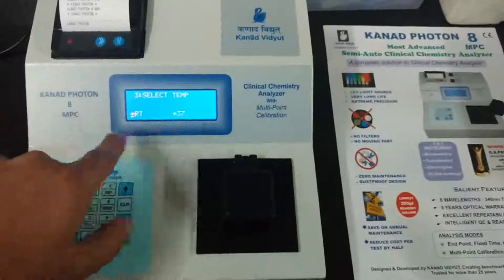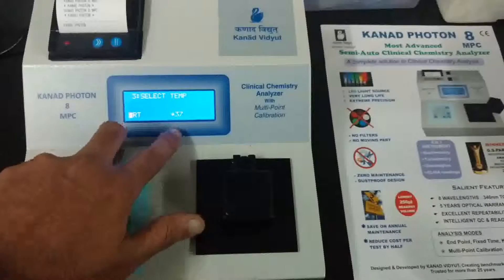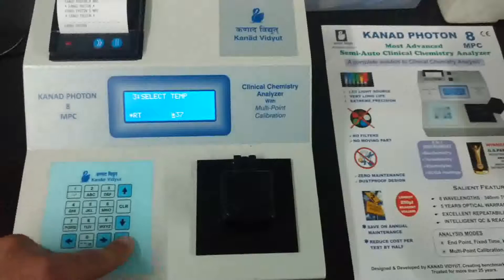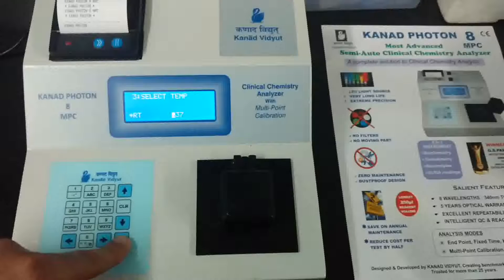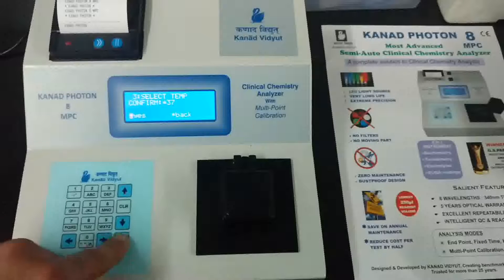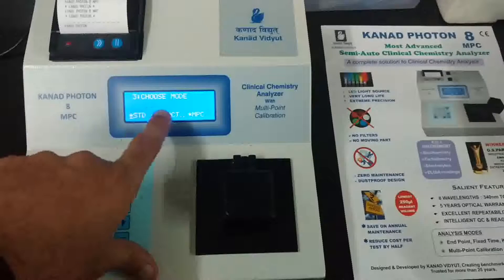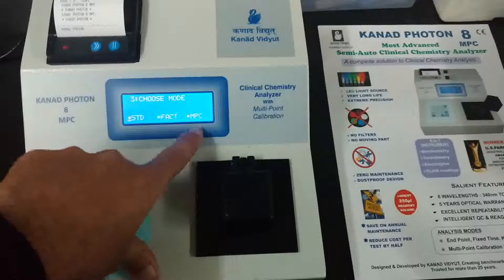Now select temperature. Two options are available: room temperature or 37°C. Normally kinetic tests are done at 37°C, so we will select 37°C. However, if the test is specified for room temperature, select that option. Always refer to the kit parameters provided inside your kit.